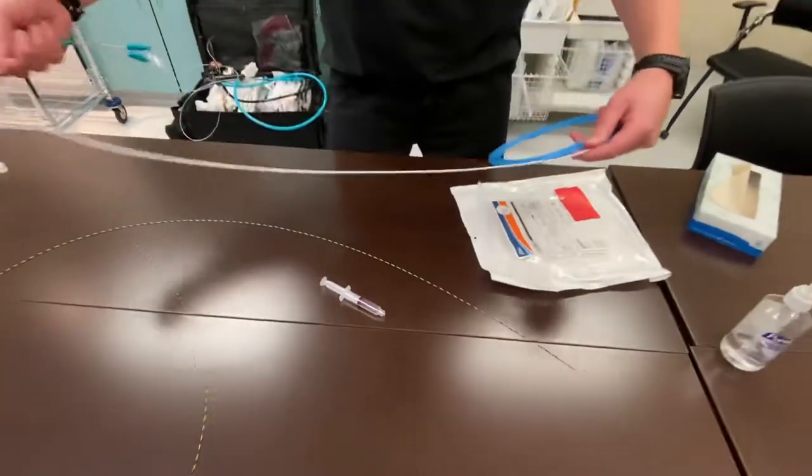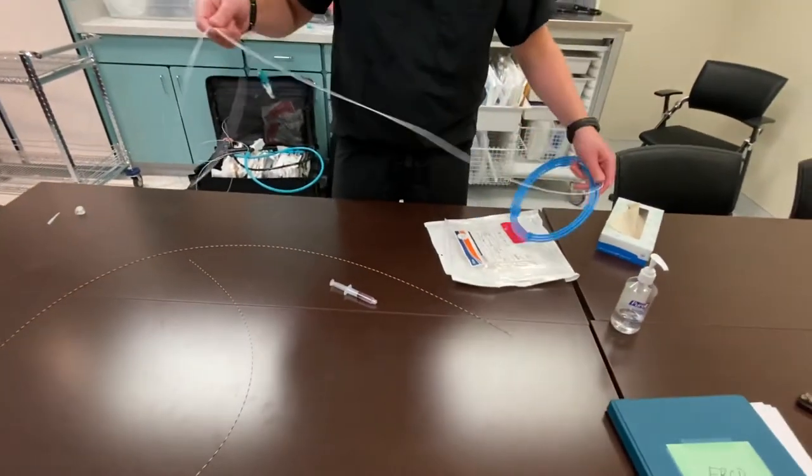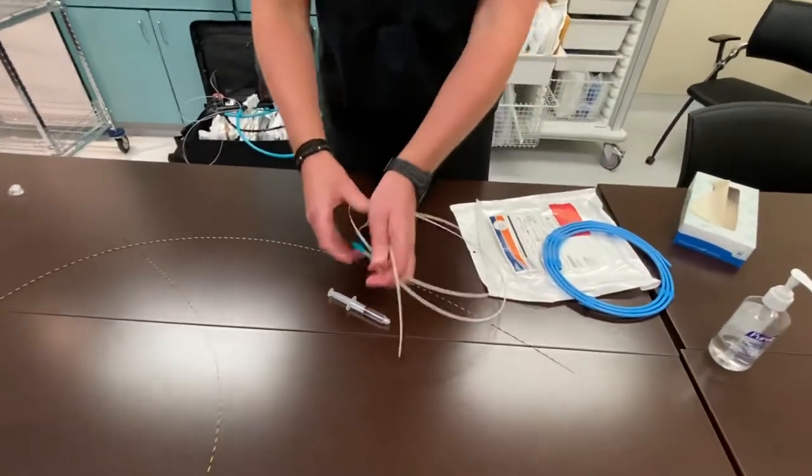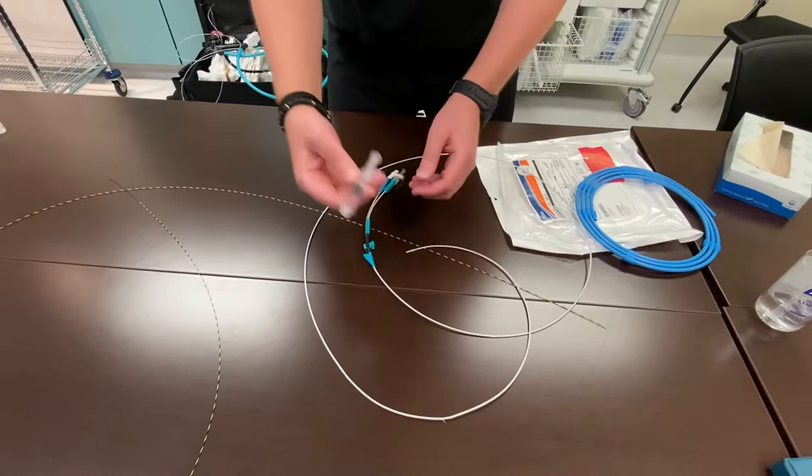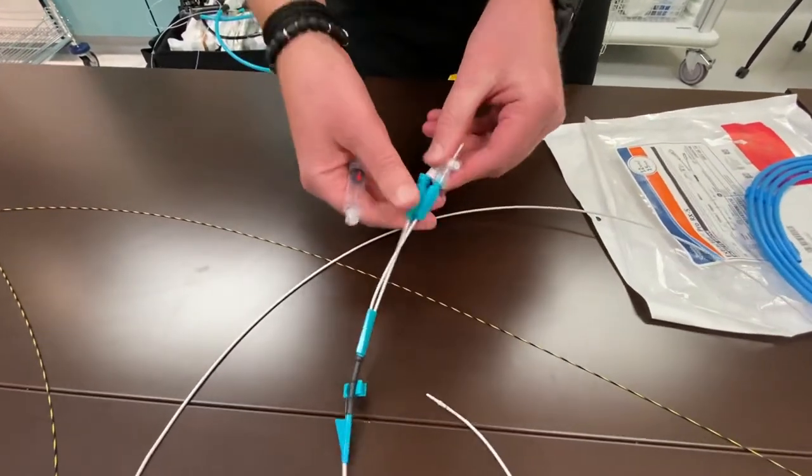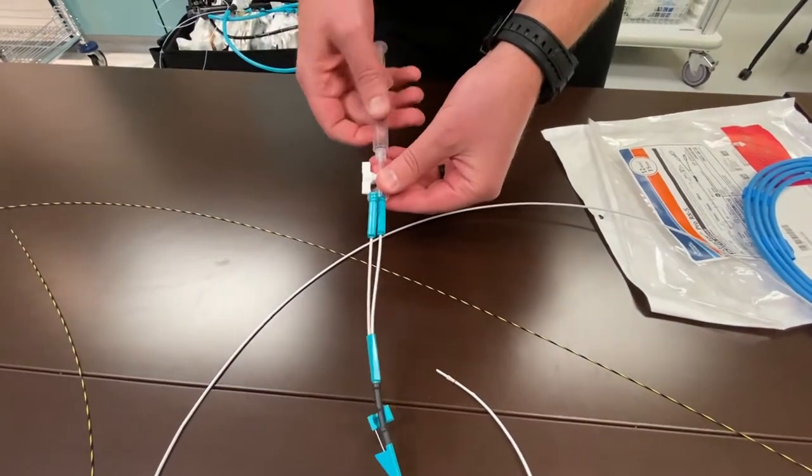What I'm going to do is pull the balloon from the hula hoop. At the beginning of each procedure, we need to connect the syringe after we've pulled it back to the port that says balloon. There's also a stopcock on that port.